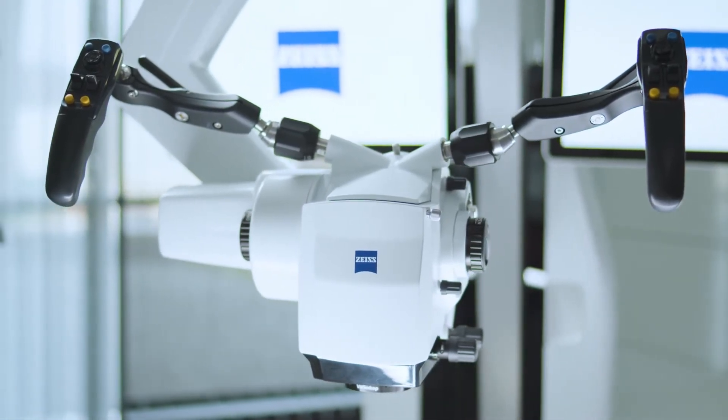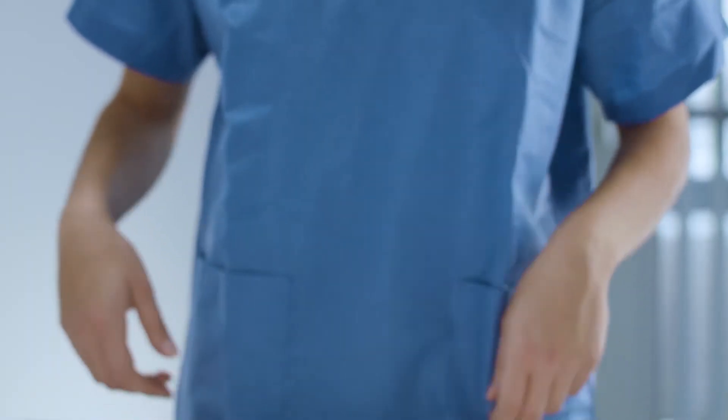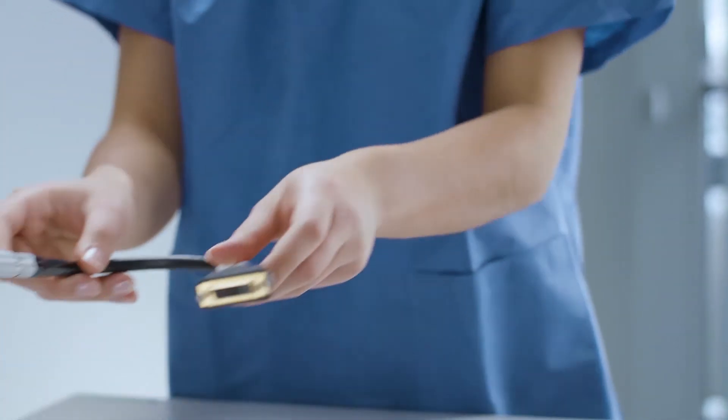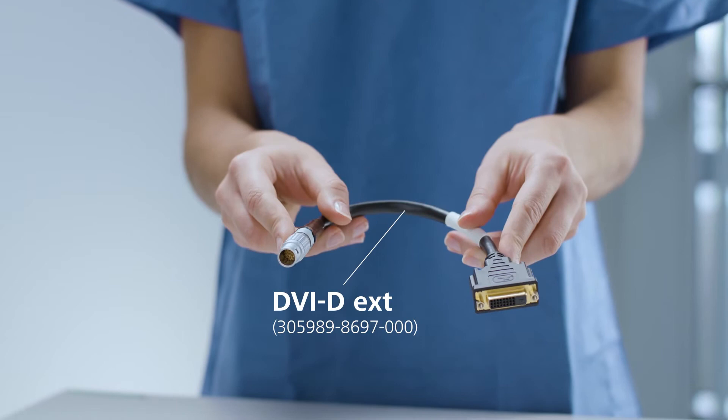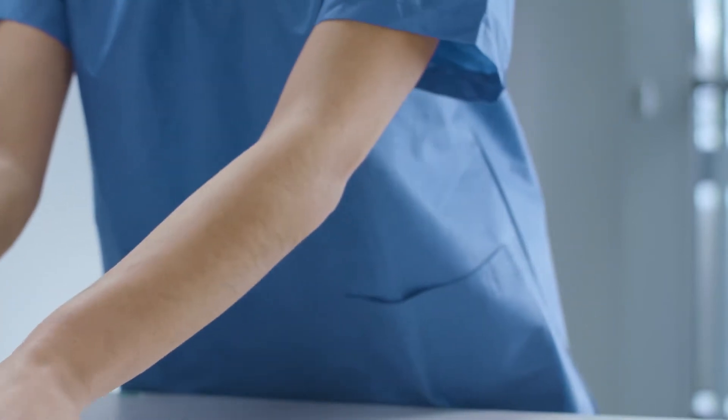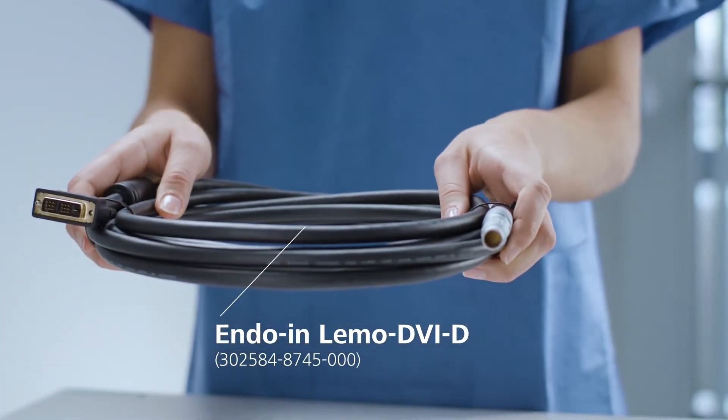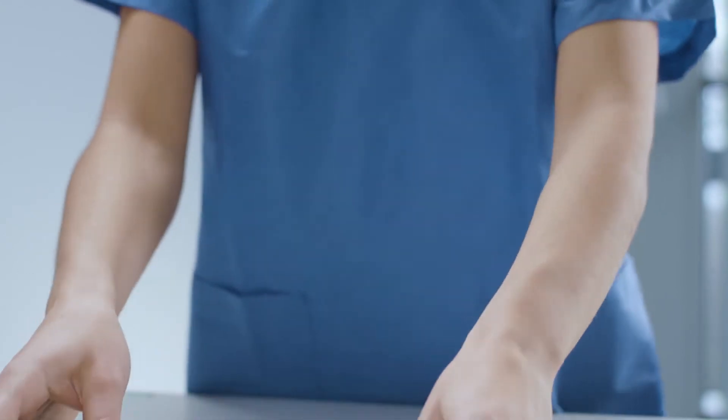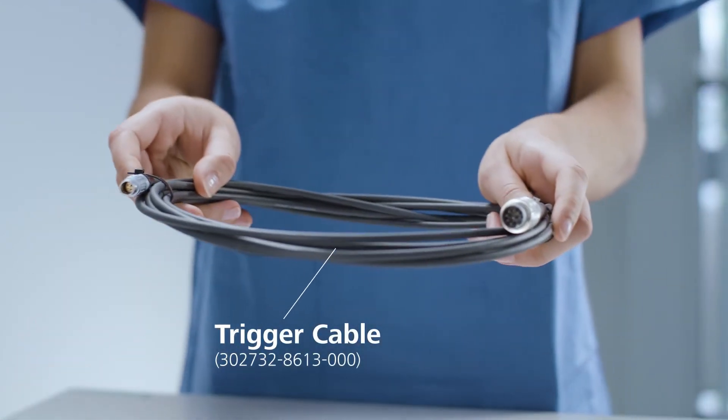To establish the connection between the two systems, the following three cables are required. One, an adapter cable DVI-D-Ext. Two, an Endo-In-Lemo DVI-D video connection cable. And three, a trigger cable.